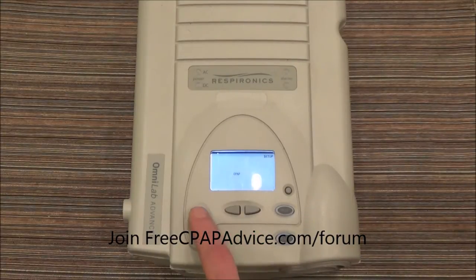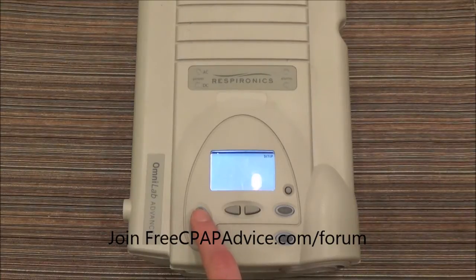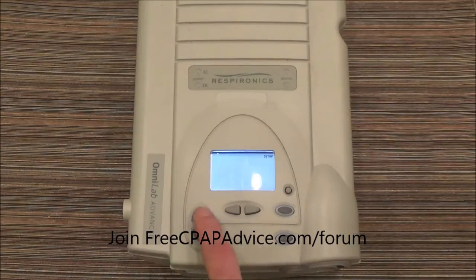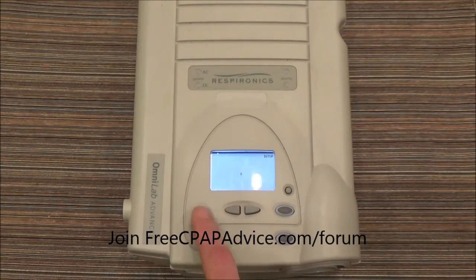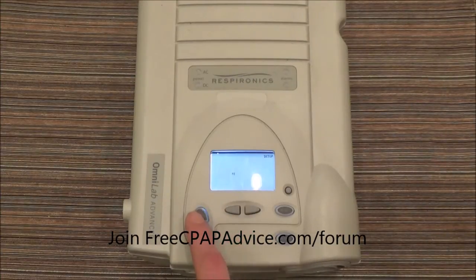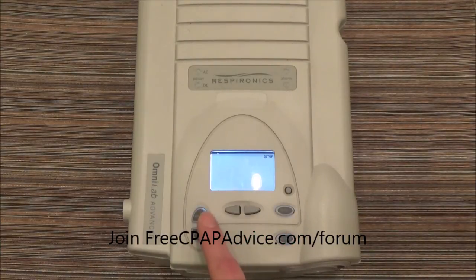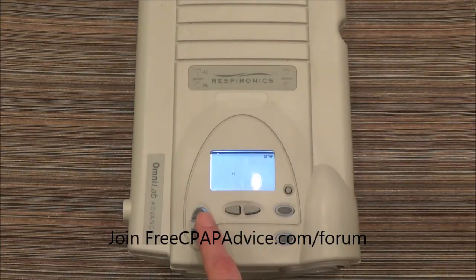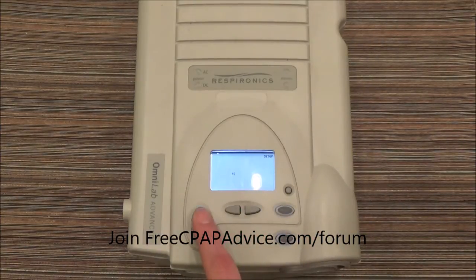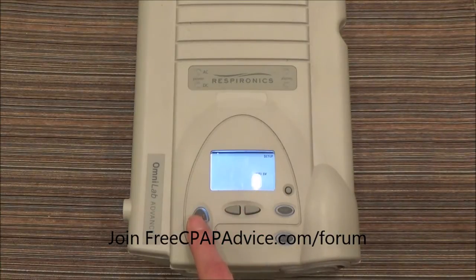Now you can see it's set for CPAP, so up or down is going to toggle it to the next therapy mode. We have CPAP; S is obviously spontaneous BiLevel; ST is spontaneous-timed BiLevel; T is timed BiLevel; and PC is pressure control, so that's where you would access AVAPS, or average volume assured pressure support. Those are for your COPD or neuromuscular disorder patients like ALS. And then we have Auto SV.